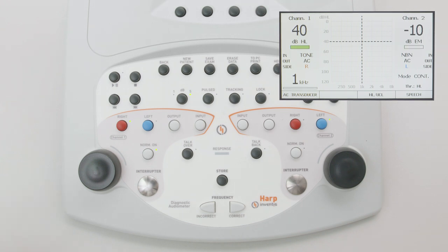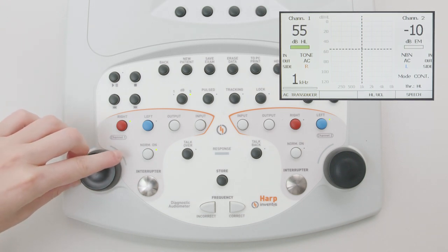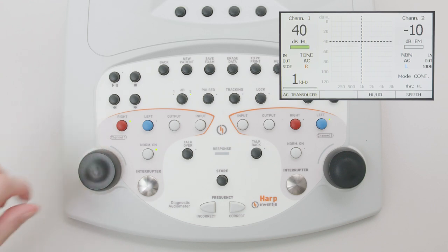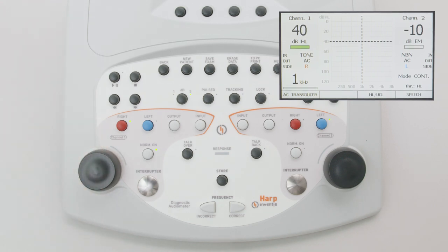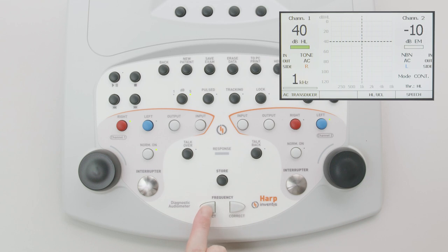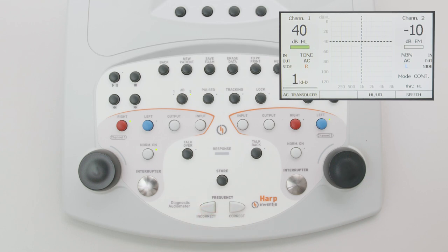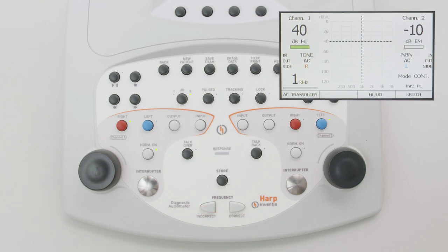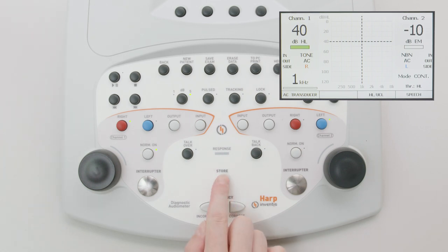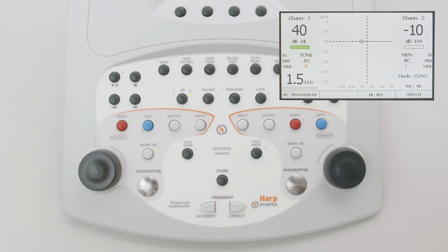The intensity level can be modified by turning the knob. The two frequency buttons are used to switch between frequencies from 125 Hz up to 8 kHz. You can press store to record the threshold level at each frequency.